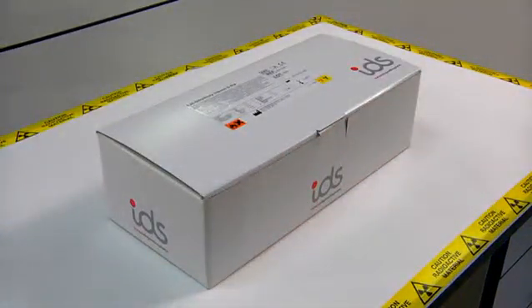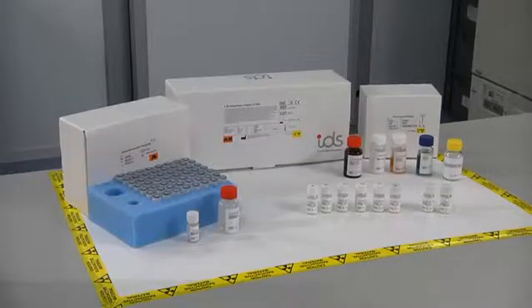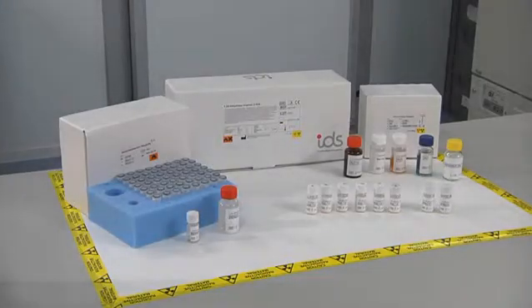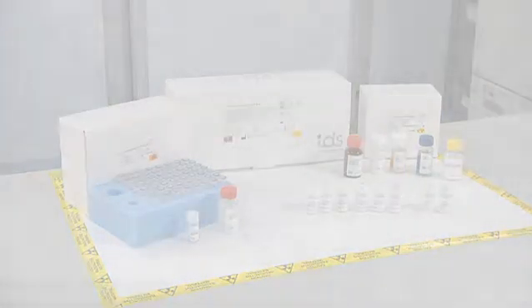Welcome to the IDS 125 Dihydroxy Vitamin D RIA Instructional DVD, helping you to get the best out of your assay.